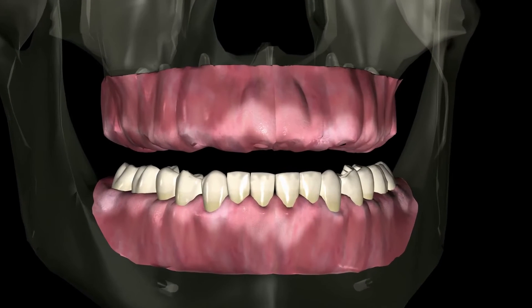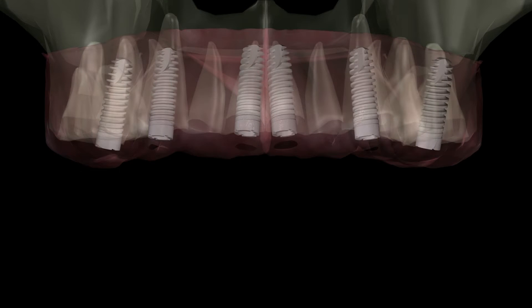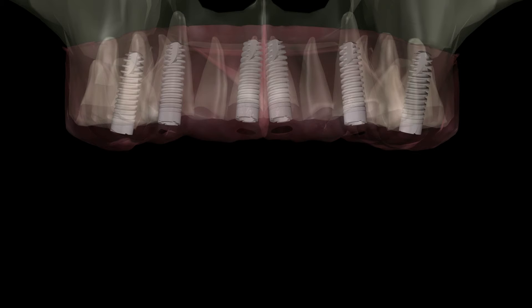Ideally, two or more freestanding implant stud abutments in an arch should be within five degrees parallel to adjacent abutments for optimal results. When implants are out of the desired alignment, angle correction abutments can be utilized to correct the non-parallelism.